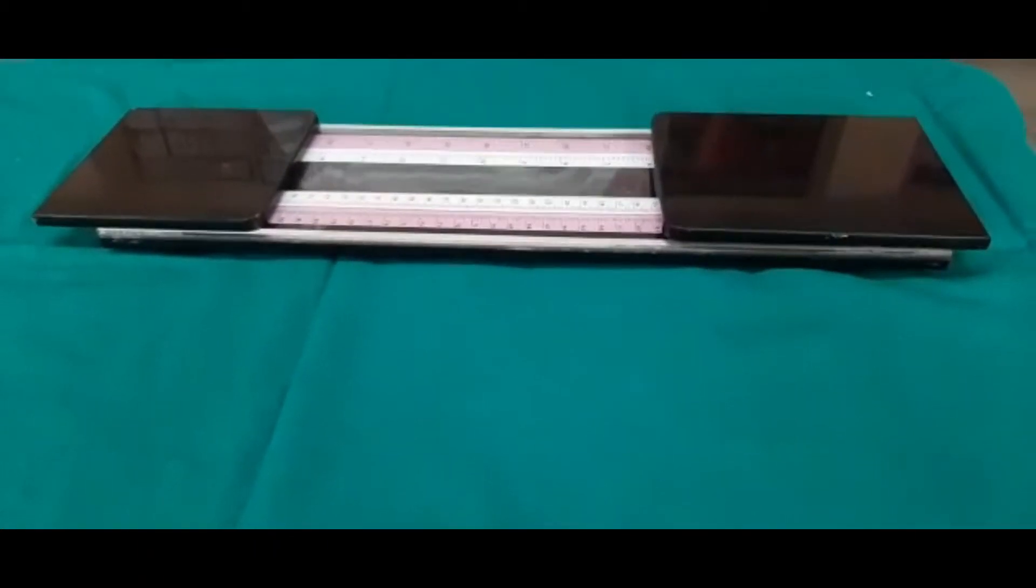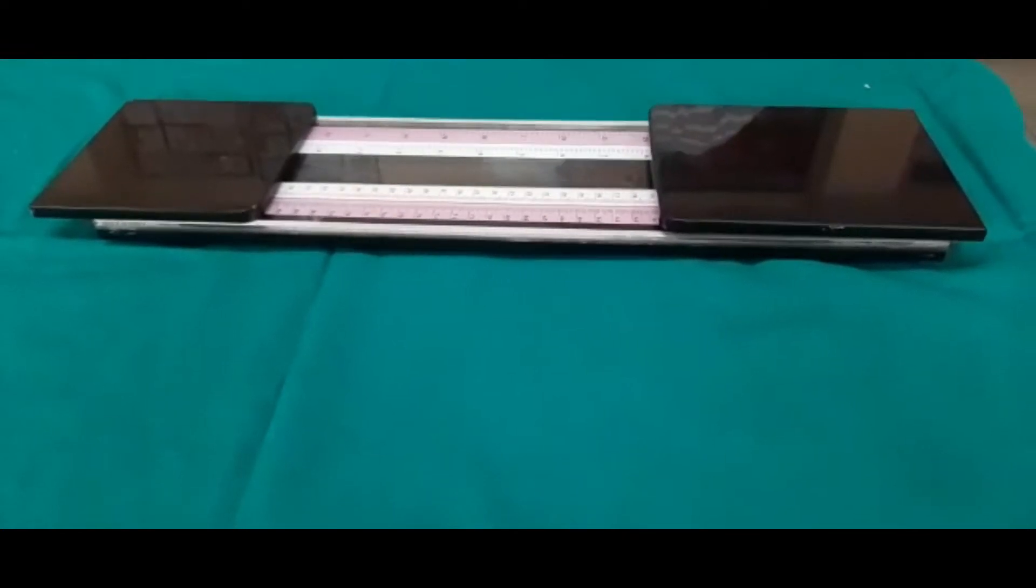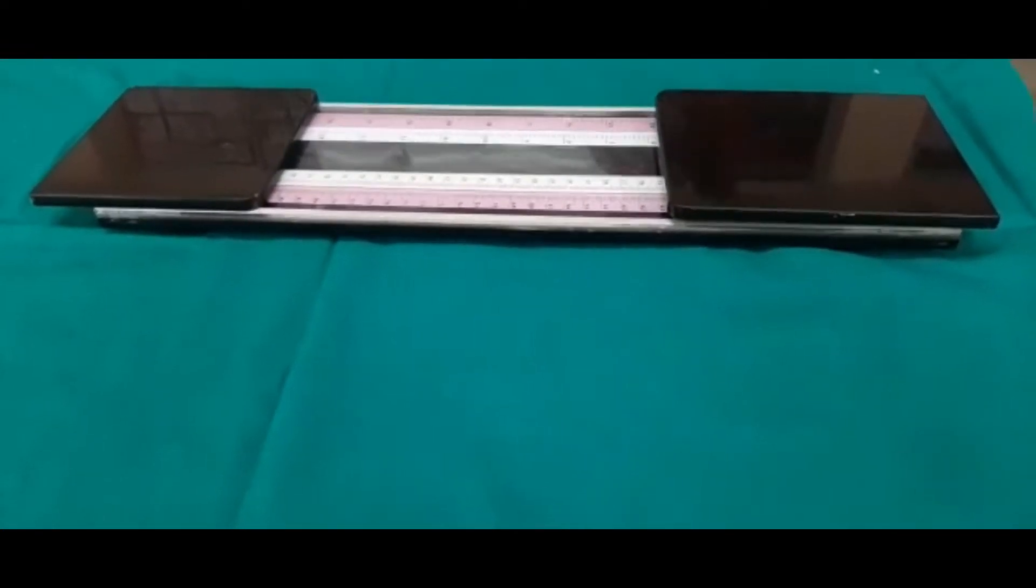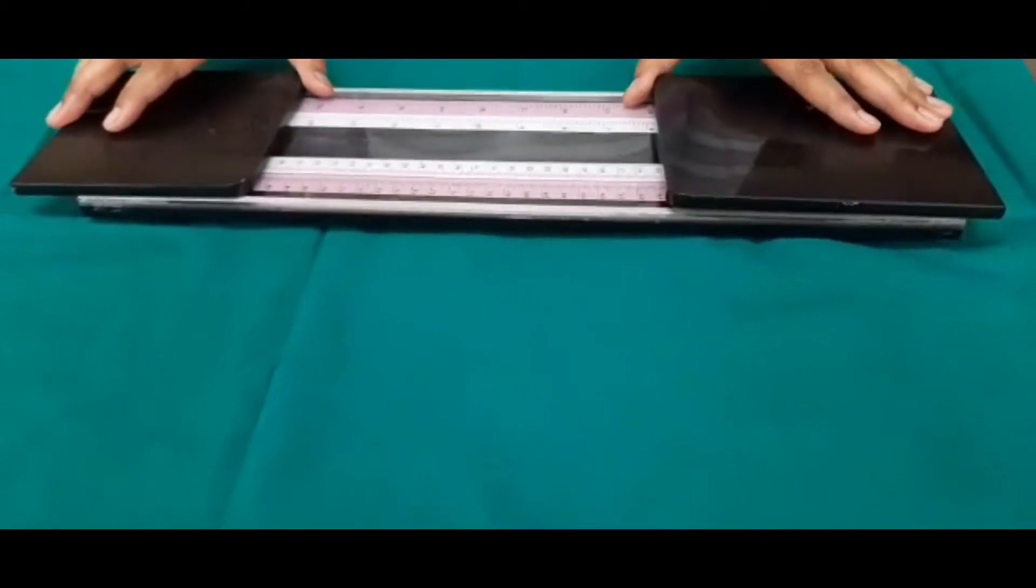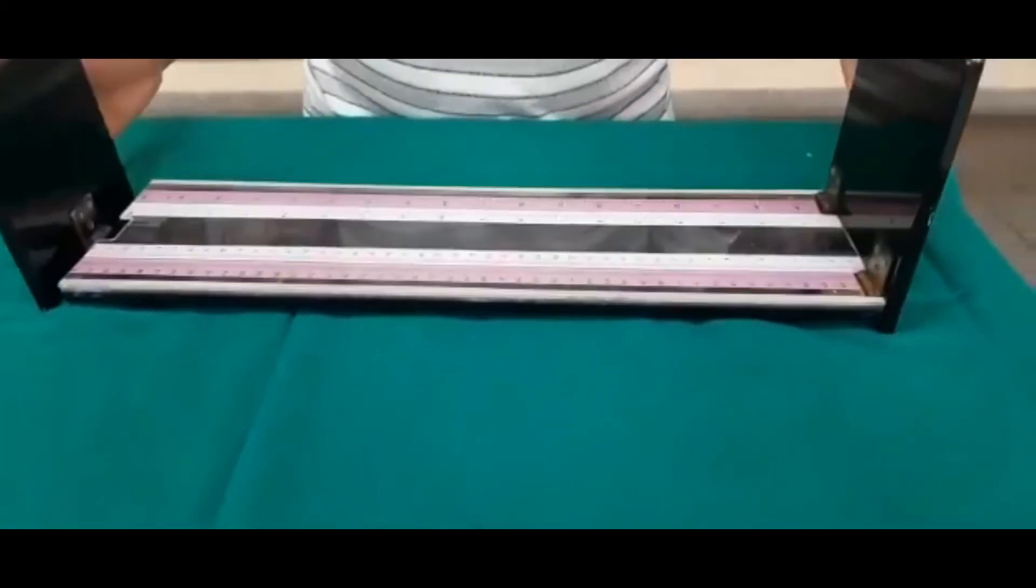Why infantometer? Because we can take the length of the infant between birth to one year of age. This is infantometer and we can open this in this way.